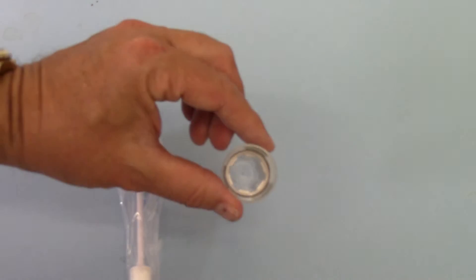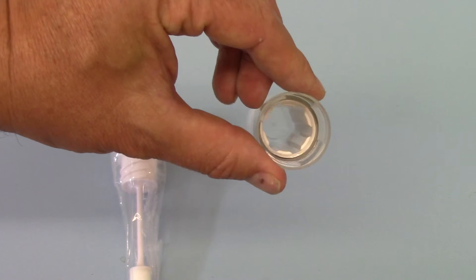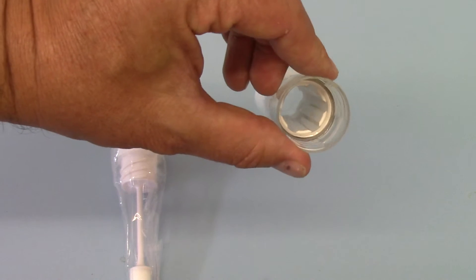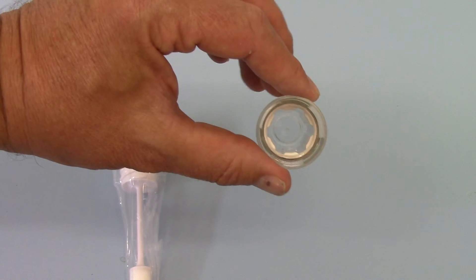And then this is the tube design. If we look down into it and bring it close to the camera, you'll see around the circumference are loaded the six individual test membranes.